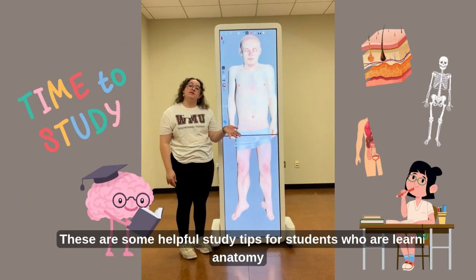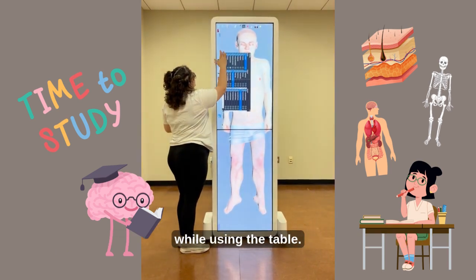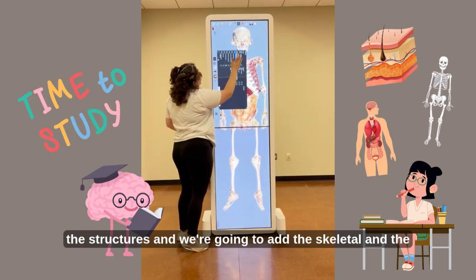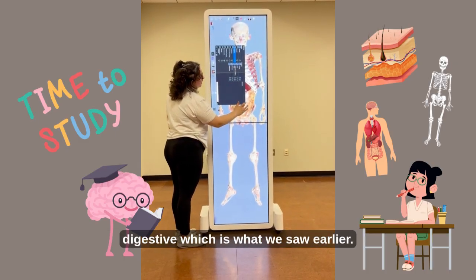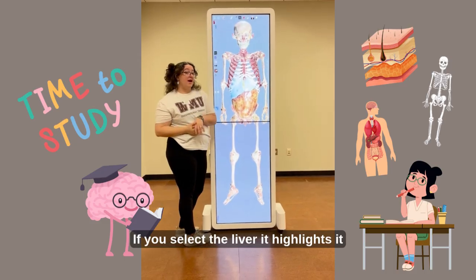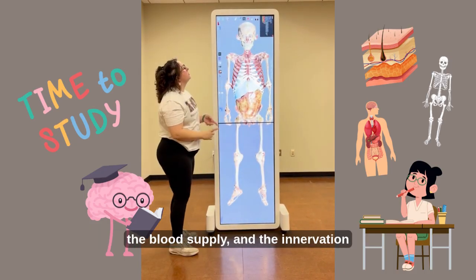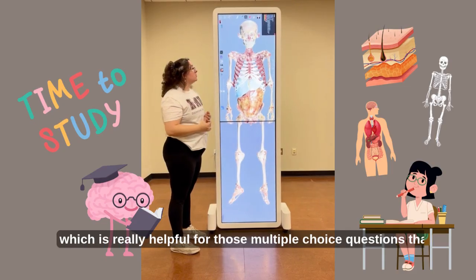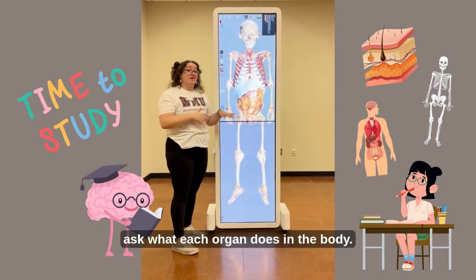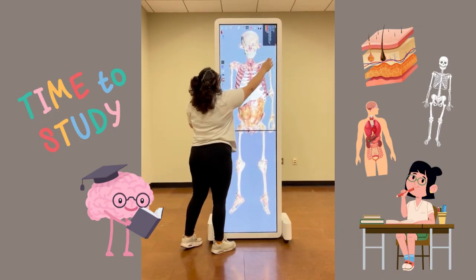These are some helpful study tips for students who are learning anatomy while using the table. So we are going to take away a lot of the structures, and we're going to add the skeletal and the digestive, which is what we saw earlier. If you select the liver, it highlights it. And in this corner up here, you can see the function, the blood supply, and the innervation, which is really helpful for those multiple choice questions that ask what each organ does in the body. So that is a really helpful tip.